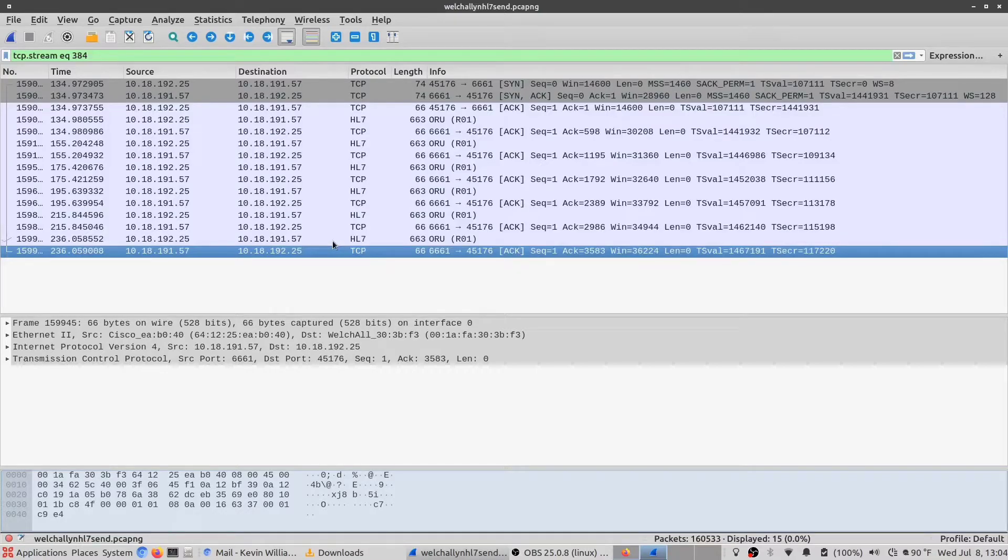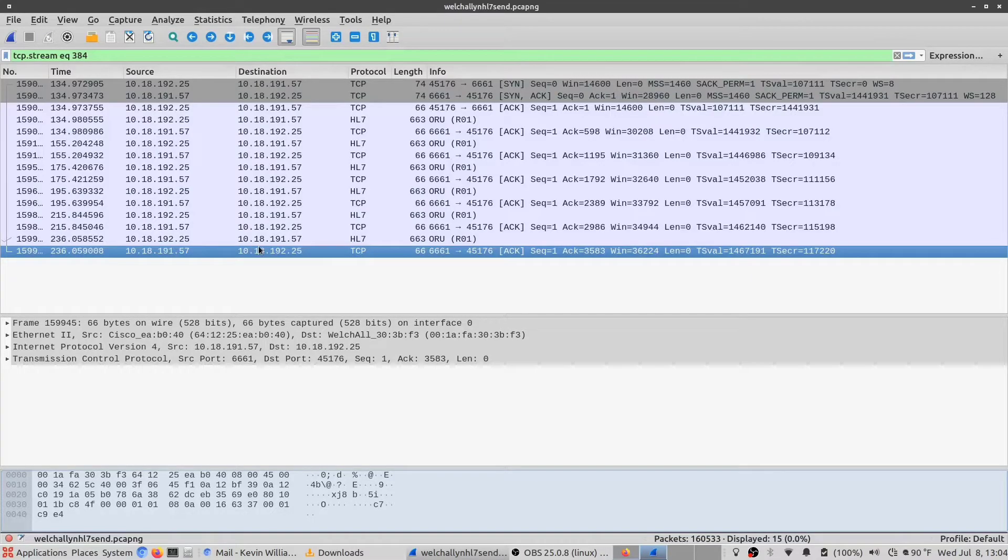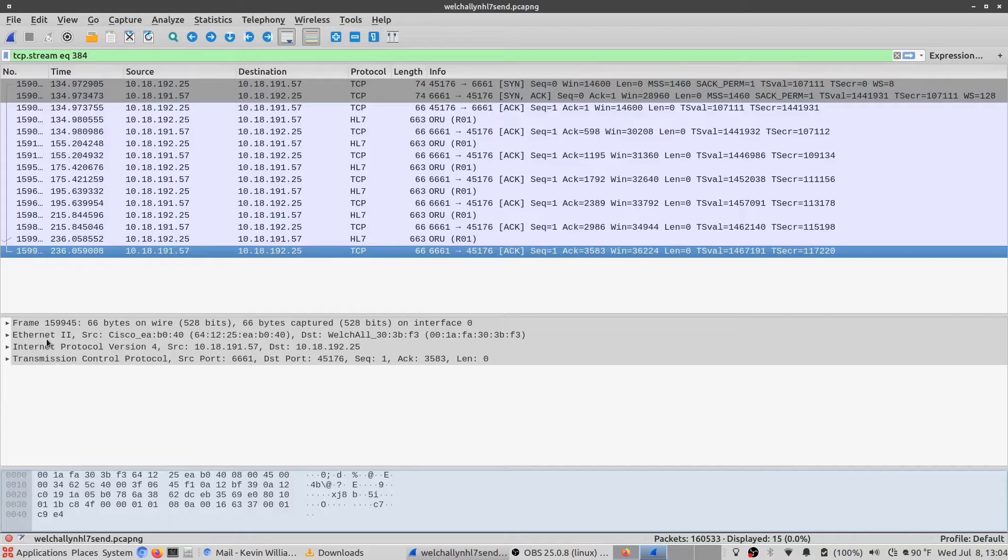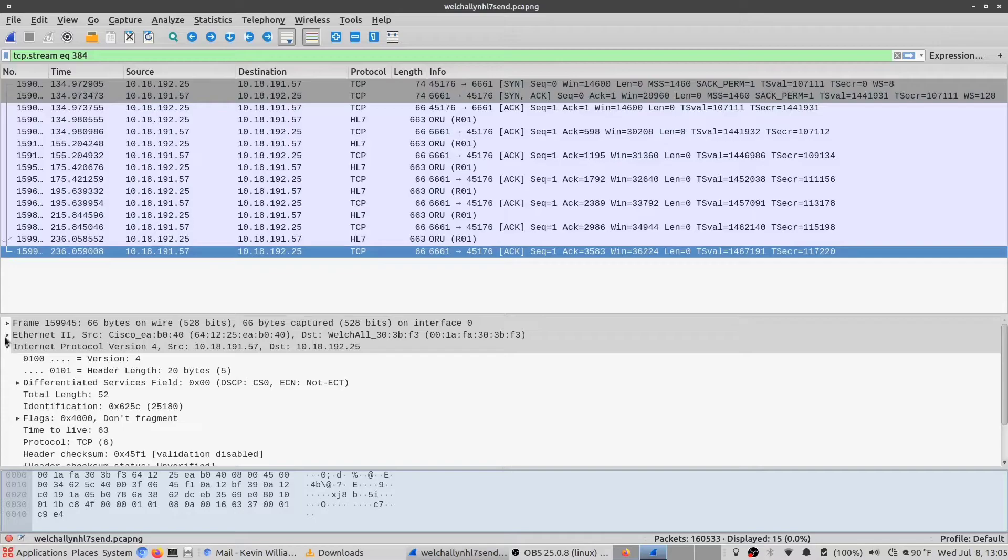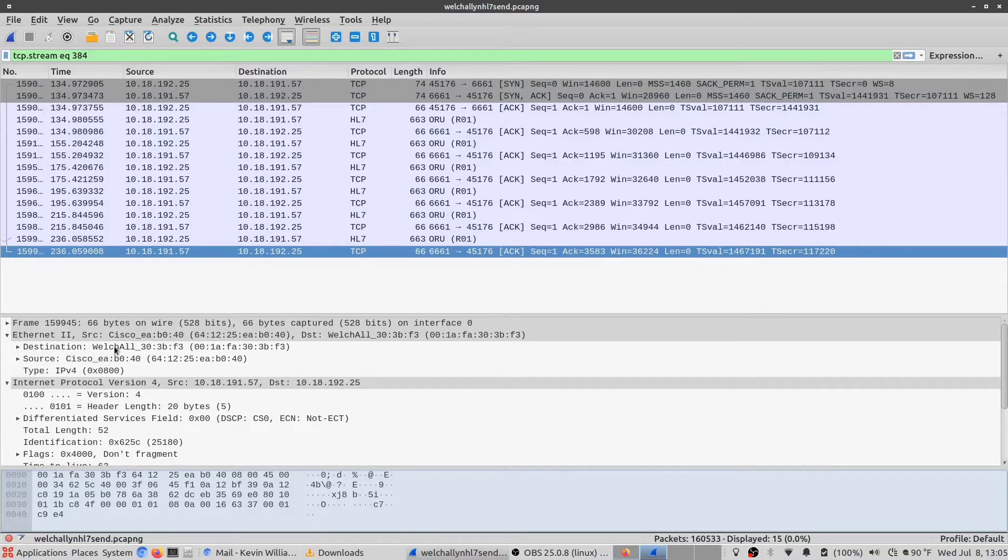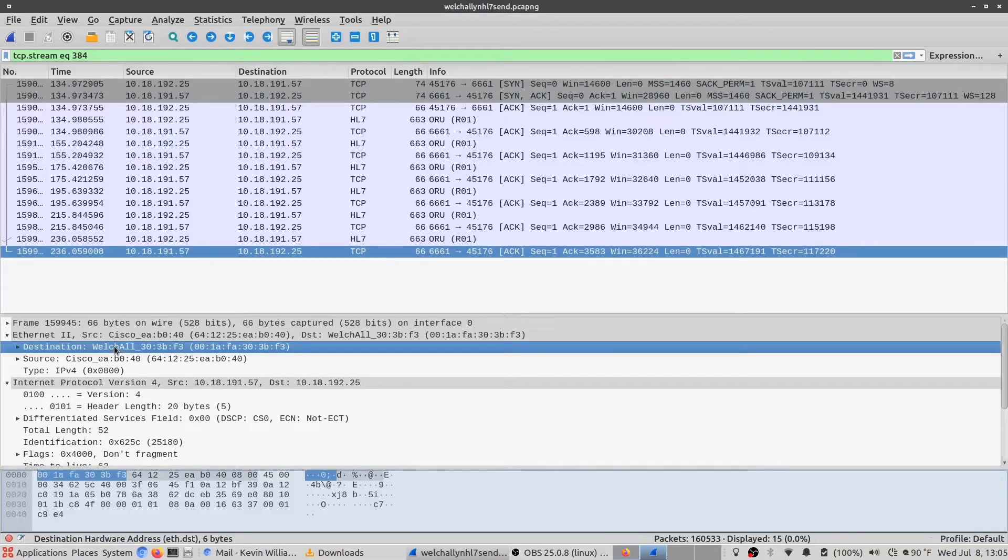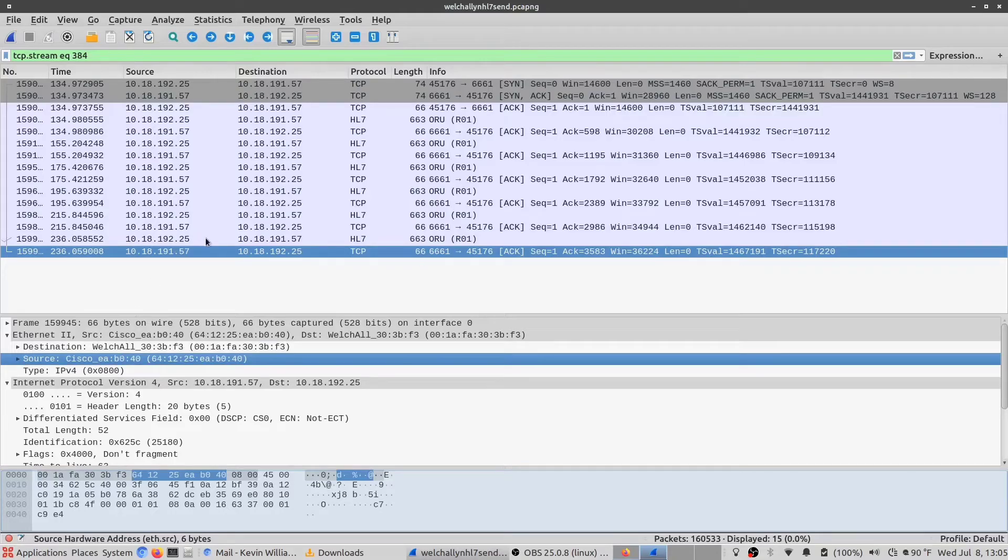But this is a useful feature of Wireshark in terms of showing you what the process is in sending the packets. If there's some kind of issue from a networking standpoint, you could load it up in Wireshark and look at the individual information in these fields and try to diagnose where a problem may be occurring.